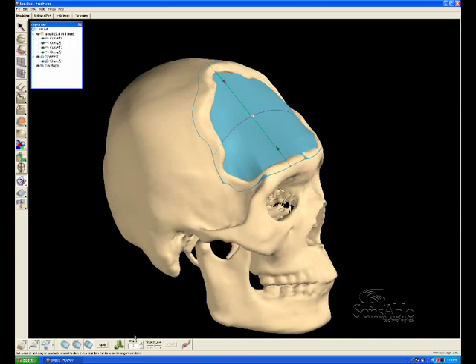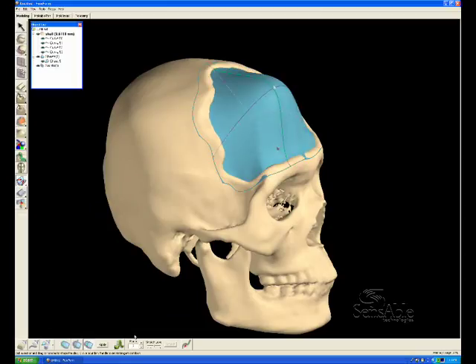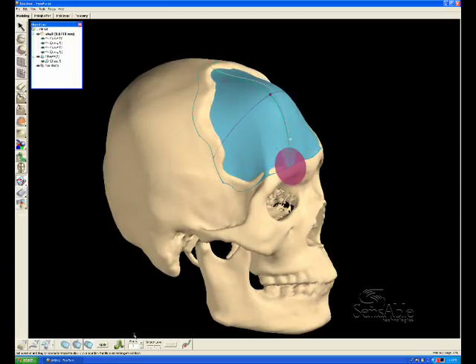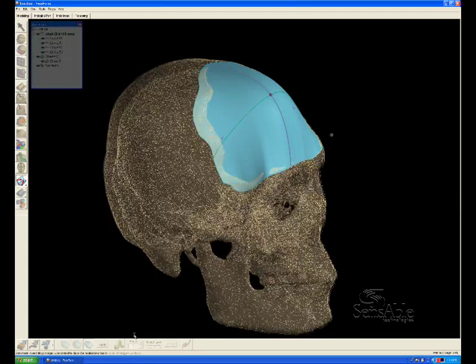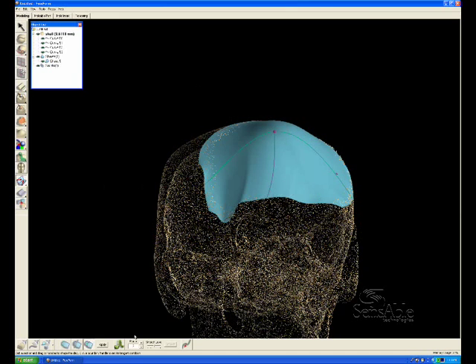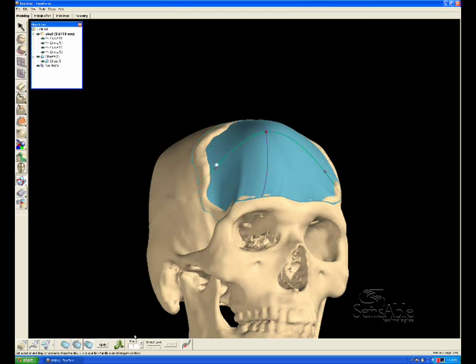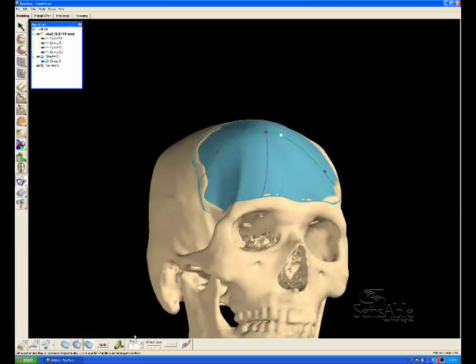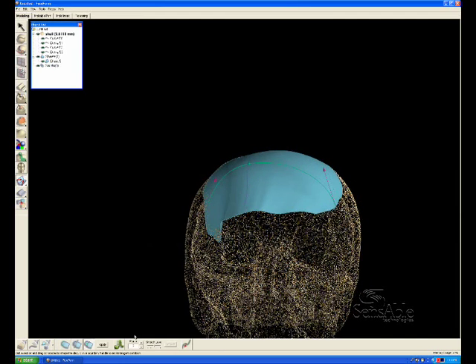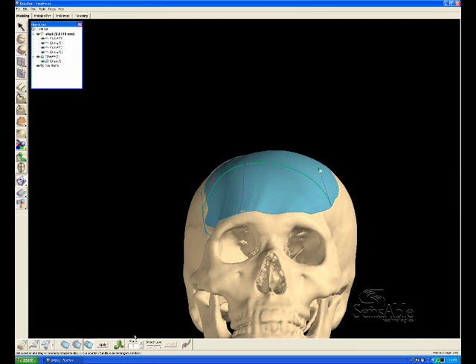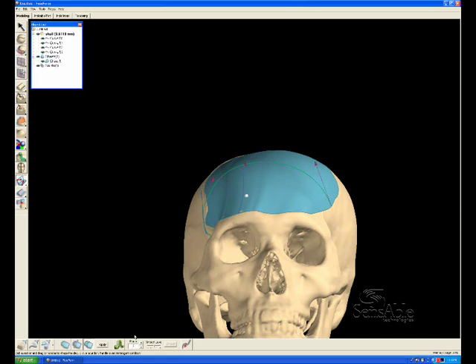Rotate the view often, haptically grabbing to the center crosshair as well as the tangency handles on the ends of each spline. So rotate from the side to the top to the front. There's a haptic snap when you reach tangency as well as that purple dot.